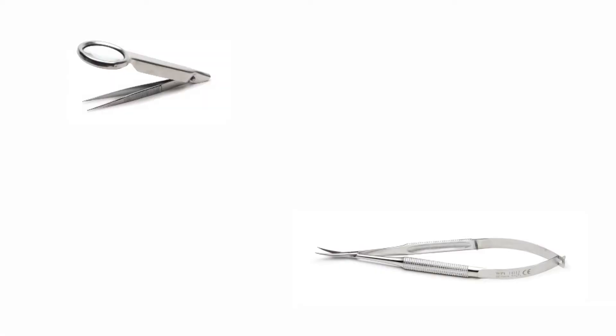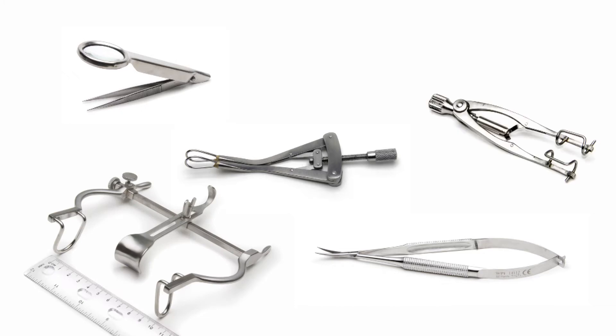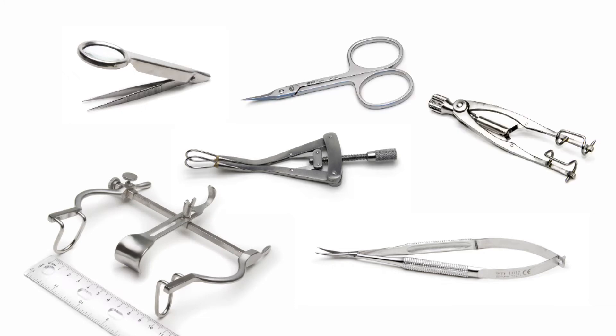If instruments are easily damaged, complex and requiring disassembly, or have small lumens, they may need to be cleaned manually.